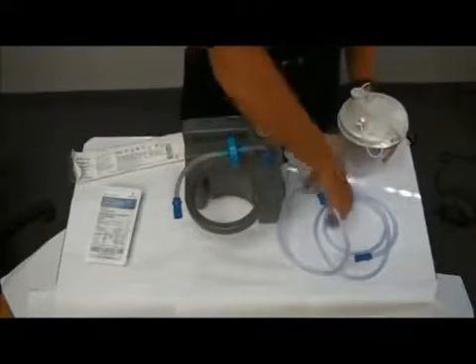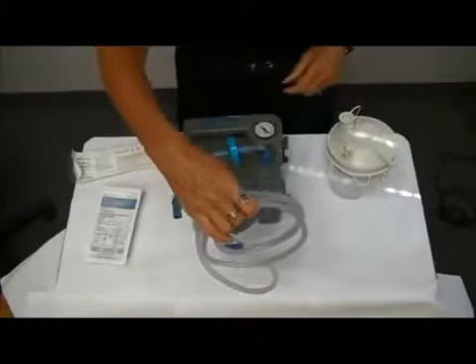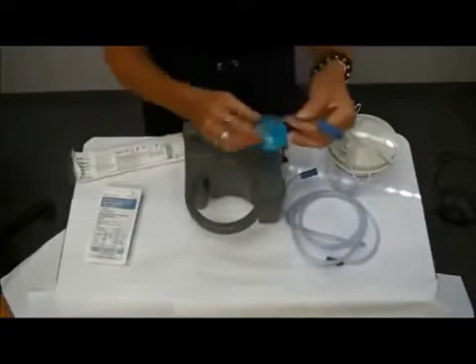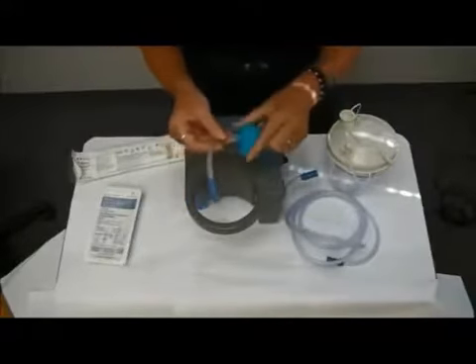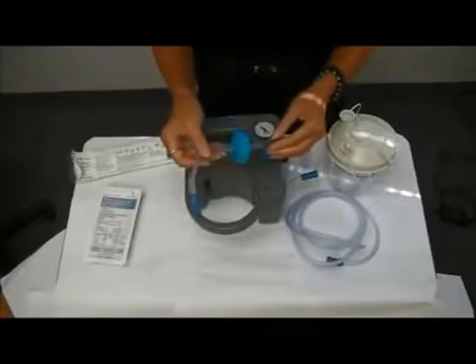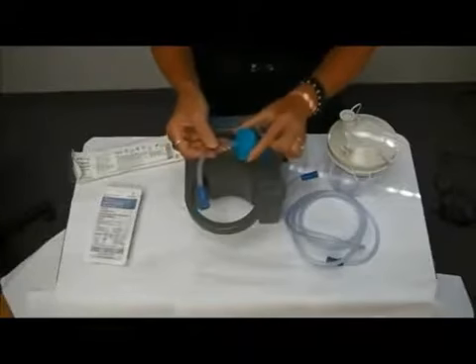You can also wash your connecting tubing in mild soap and water, rinse, and air dry. The tubing with your filter attached — you do not want this to get wet. If this filter gets wet, the machine will not have any suction. So if you're not getting suction, check and make sure that your filter has not gotten wet.